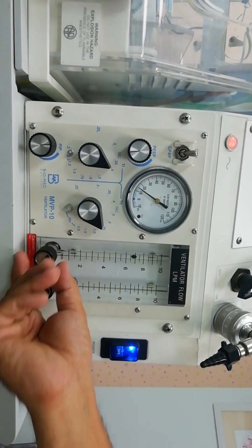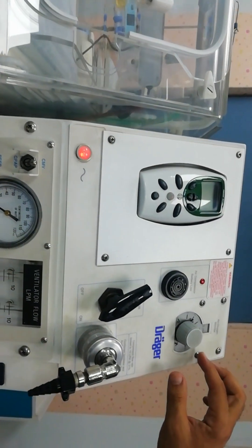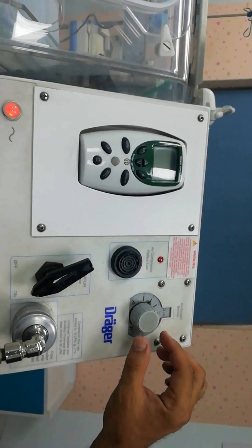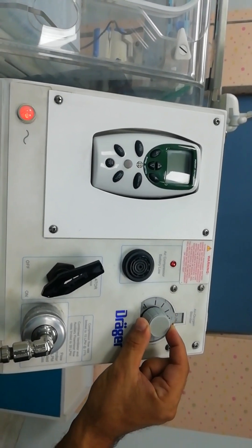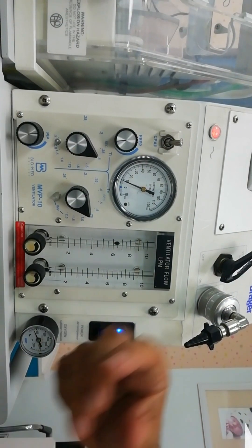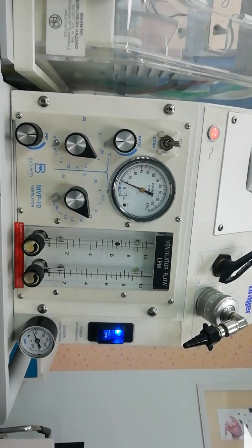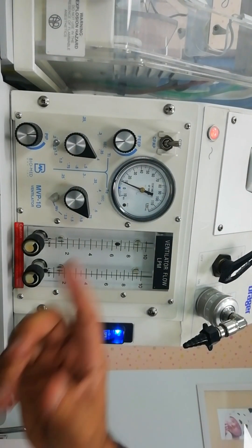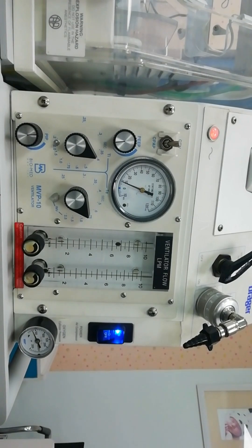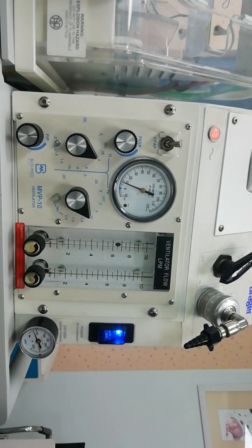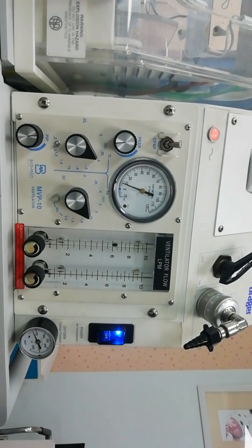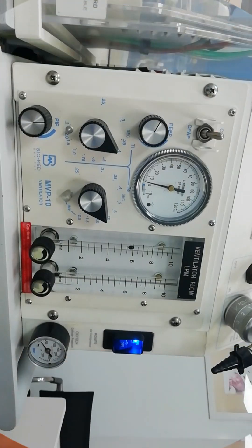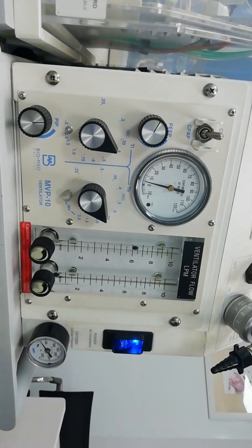Setting the flow. Then we have the amount of percentage of oxygen we require. Usually we start with 60 percent. We have two modes: the controlled mechanical ventilation mode and we have the CPAP mode. According to whether the patient is able to self-breathe or not we are going to use the mode accordingly.